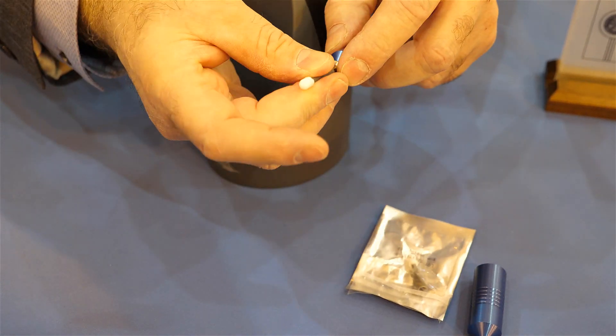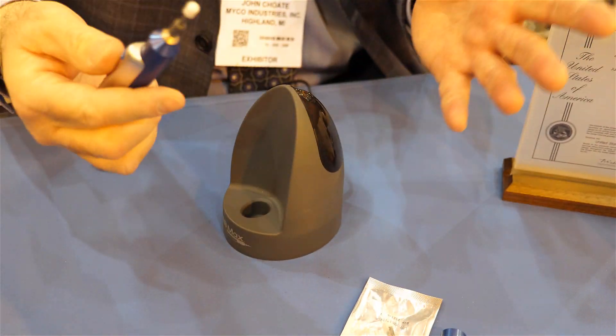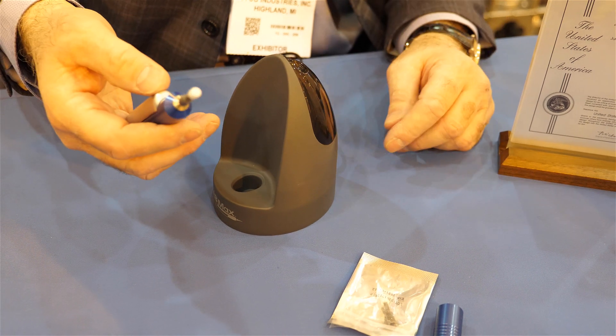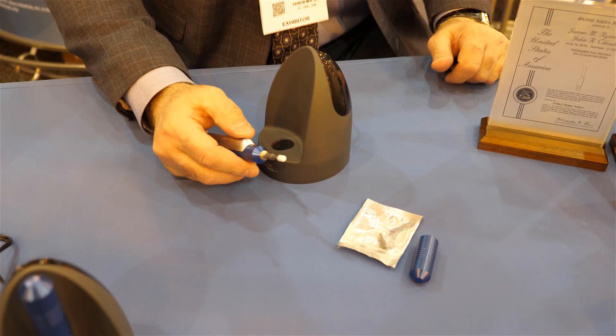The tips would be pulled from the peel pouch and assembled onto the chuck. Once they're saturated, the PVA swells and becomes very soft. It's surgical-grade micro sponge used to debride the anterior eyelid margins. In terms of cost, we are less than half of our competitors.